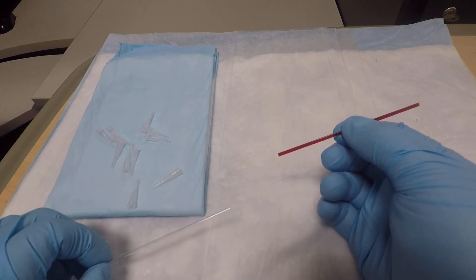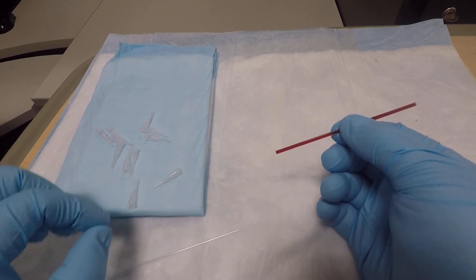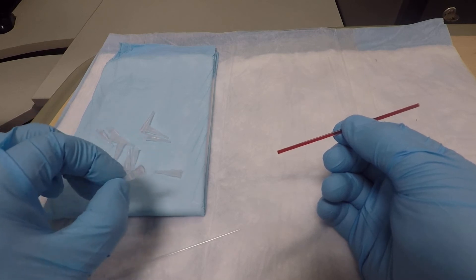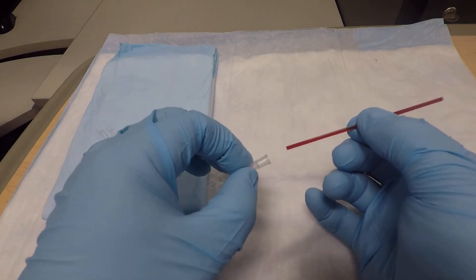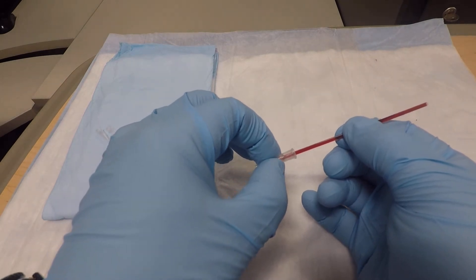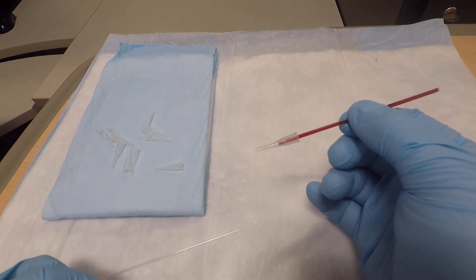First, catch your sample and run like the dickens to the blood gas lab, where you will have your sample ready to be used or extracted.